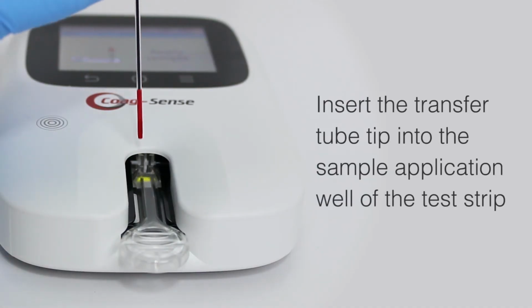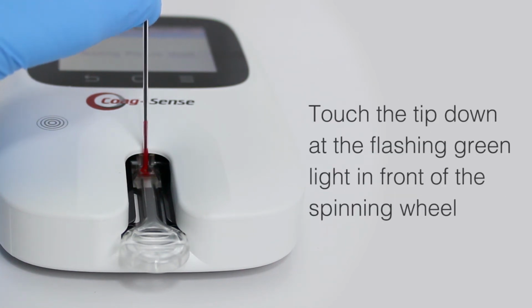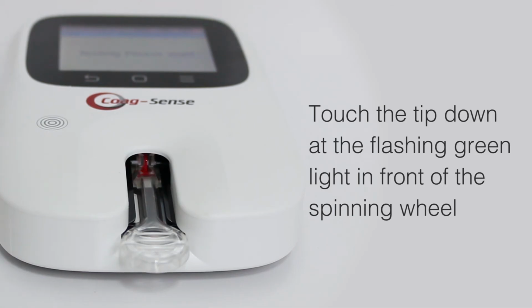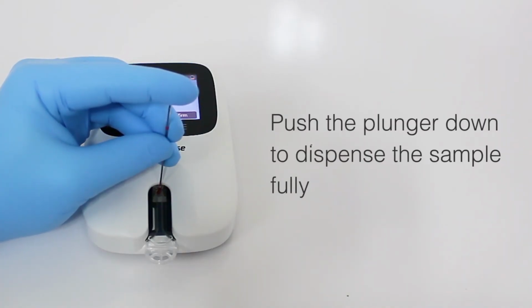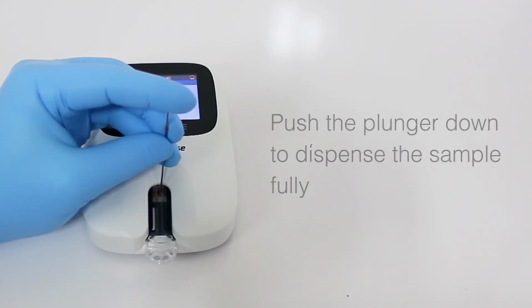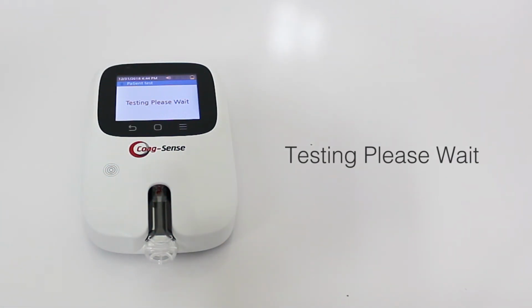Insert the transfer tube tip into the sample application well of the test strip and touch the tip down at the flashing green light in front of the spinning wheel. Push the plunger down to dispense the sample fully. The light should go out and the meter should display "Testing, please wait."